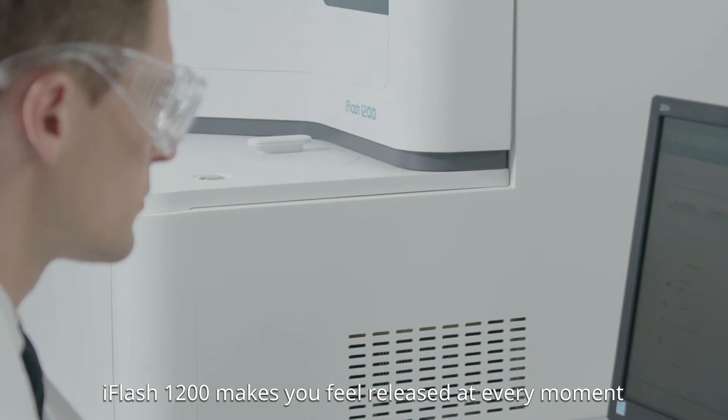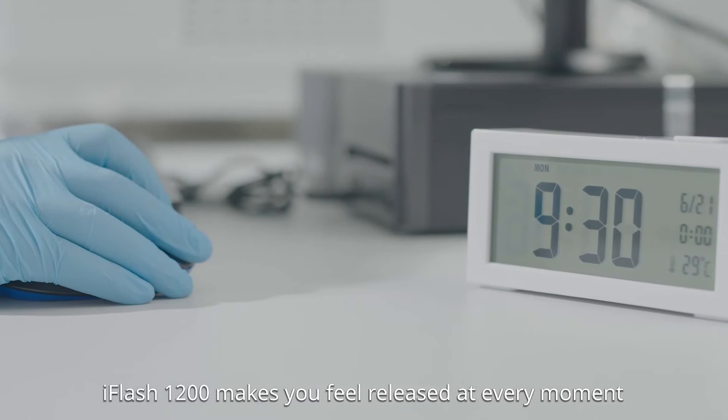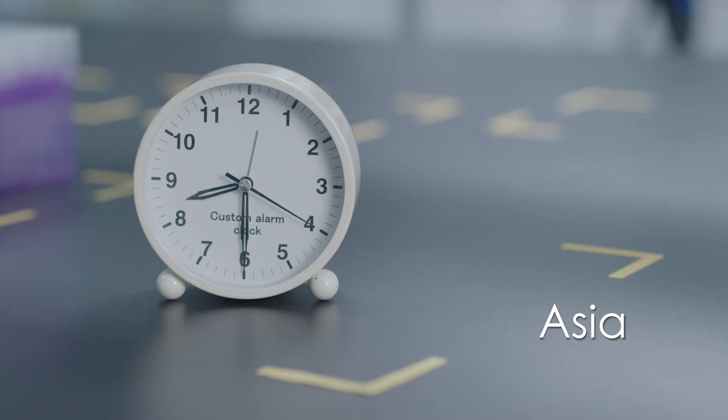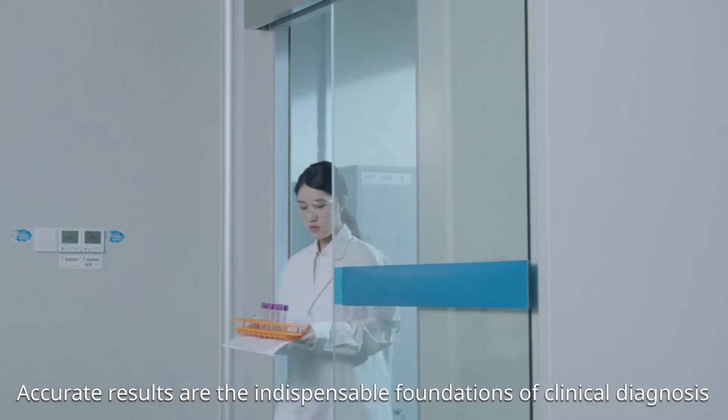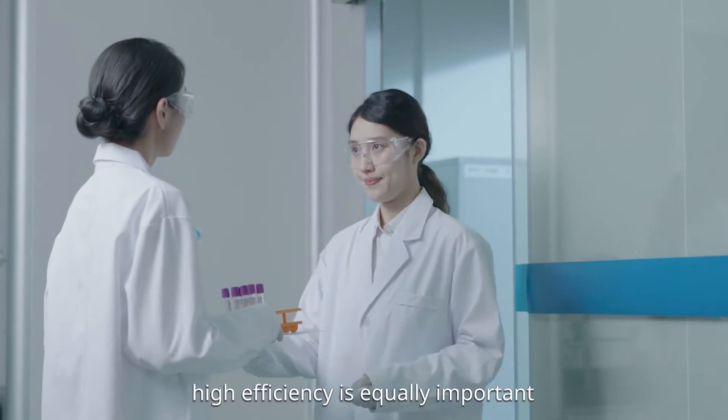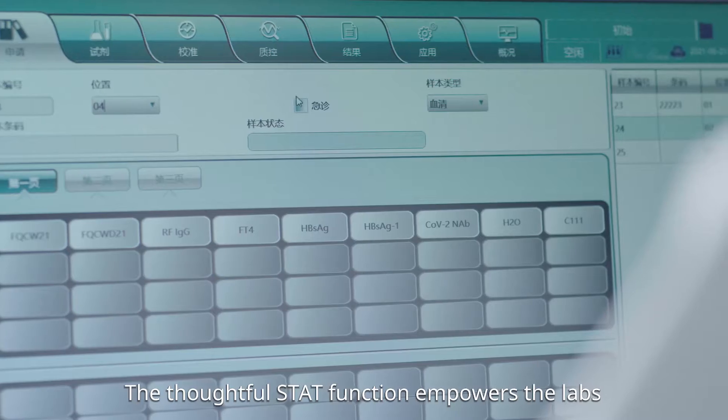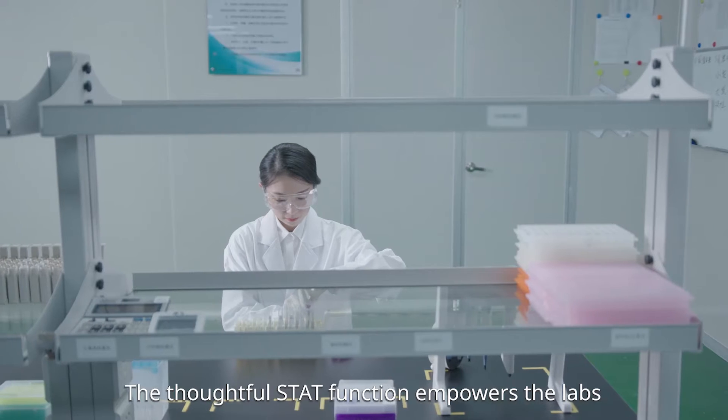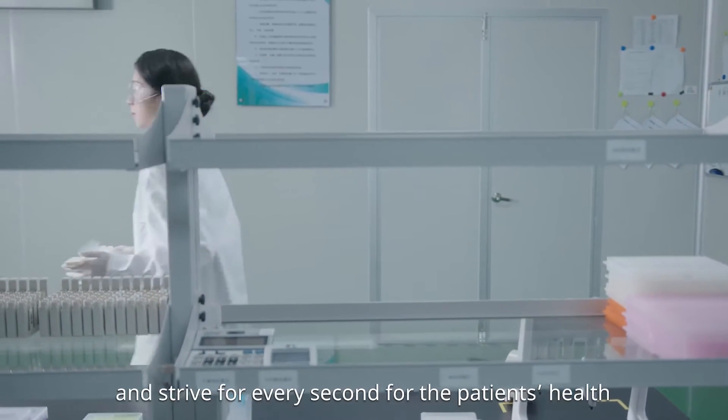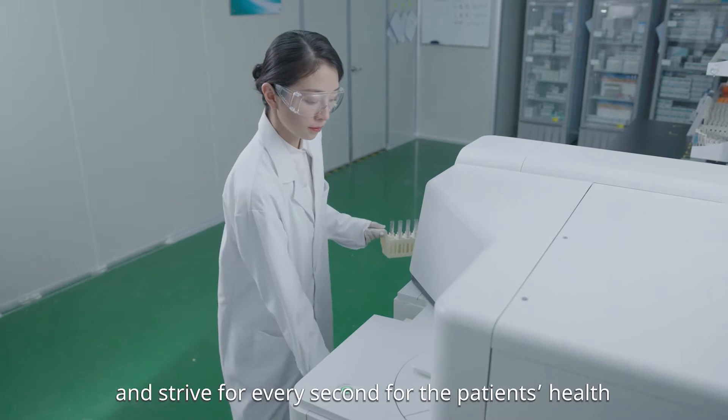iFlash 1200 makes you feel released at every moment. Accurate results are the indispensable foundation of clinical diagnosis. On top of this, high efficiency is equally important. The thoughtful STAT function empowers the lab to respond to various challenges flexibly and strive for every second for their patients' health.